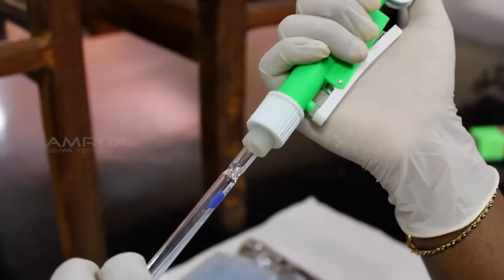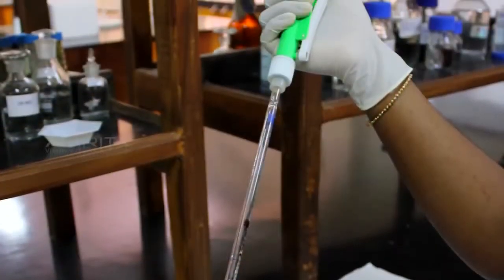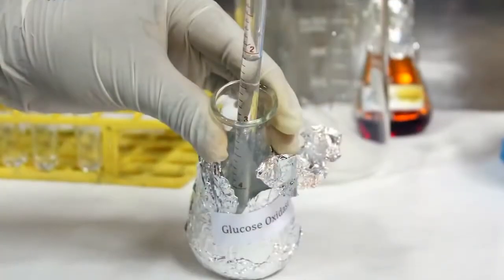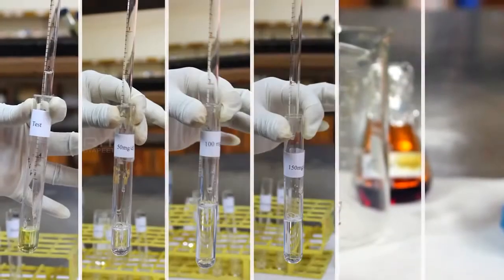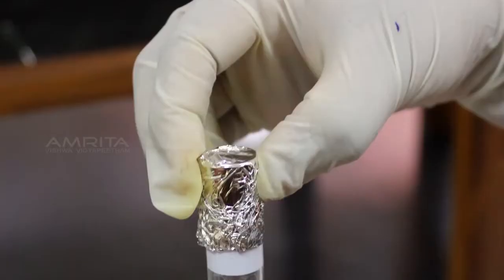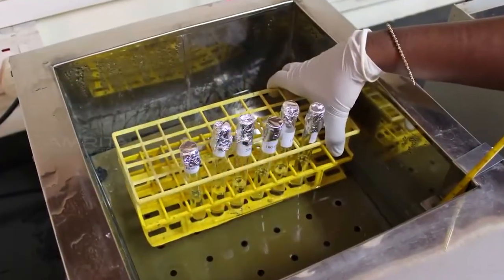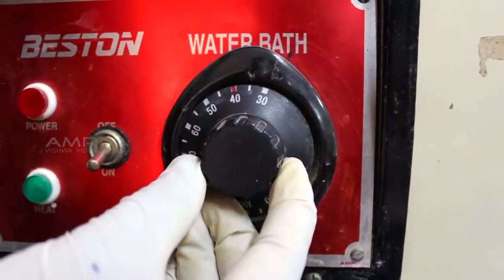Now connect the glass pipette to the pipette pump and transfer 5 mL of glucose oxidase reagent to all the test tubes. Cover the test tubes with aluminium foil and place them in the water bath at 37 degrees Celsius for 1 hour.